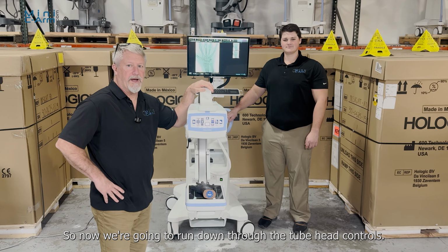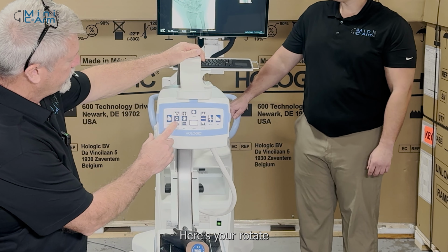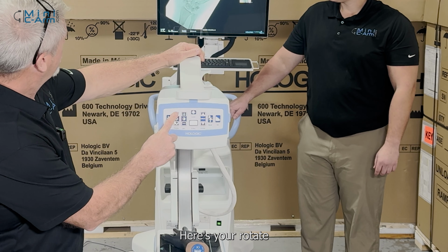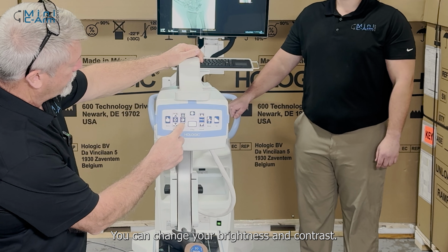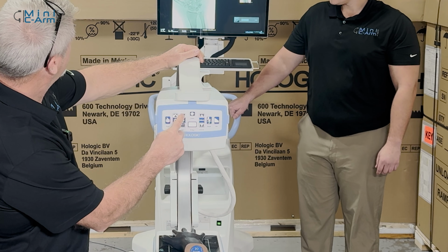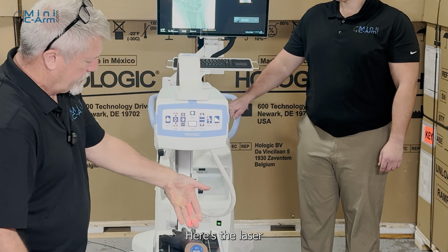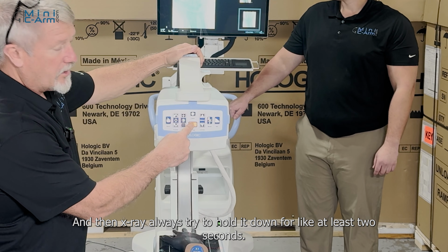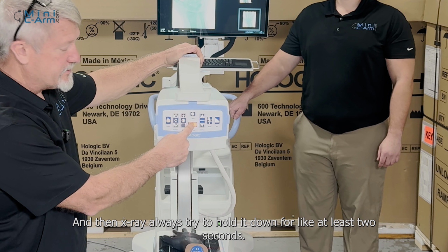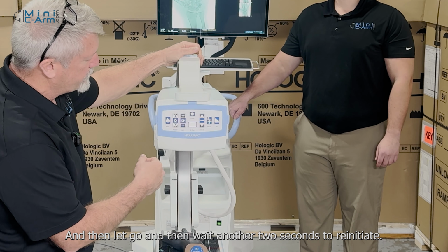Alright, so now we're going to run down through the tube head controls. Here's your save button. Here's your rotate, clockwise and counterclockwise. You can change your brightness and contrast. Here's the laser. Not sure if you can see it or not. And then X-ray. Always try to hold it down for at least 2 seconds and then let go, and then wait another 2 seconds to reinitiate.